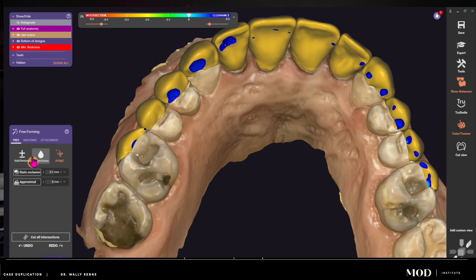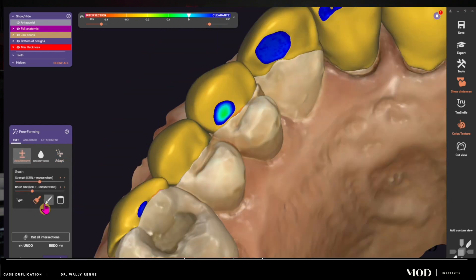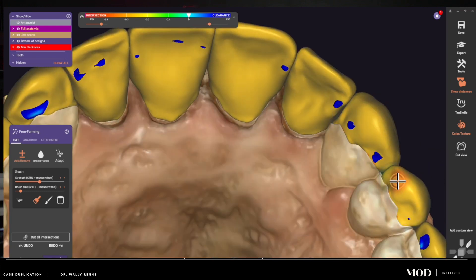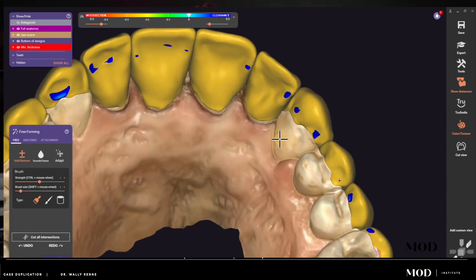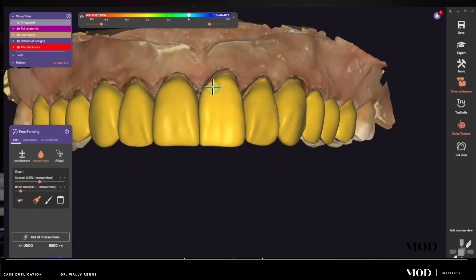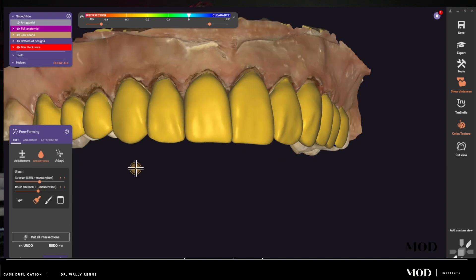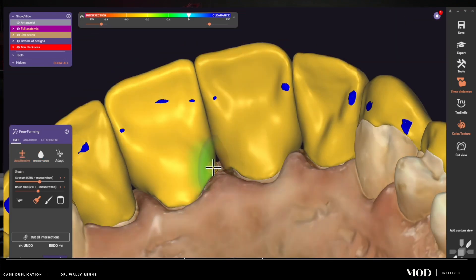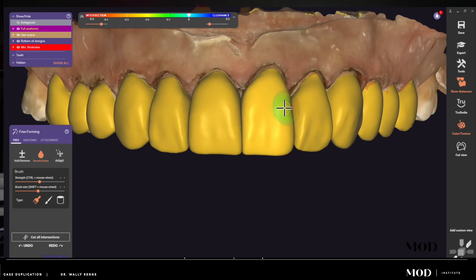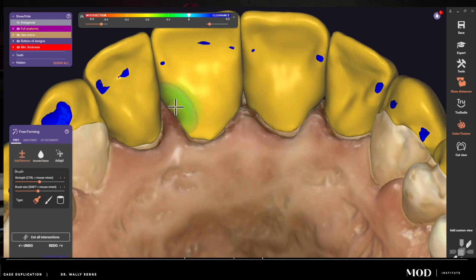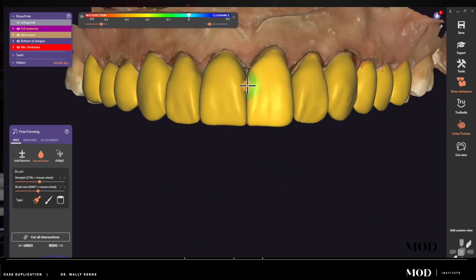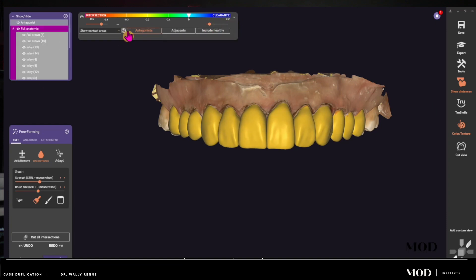We adapt down to our margins, cut proximal contacts, and fine-tune occlusion and proximal contacts just ever so slightly. The whole entire design process is literally about 10 minutes because it's all been done before — the patient has already approved everything. Every tooth is still editable; you can still move and smooth them. It's almost instantaneous, doing this on the day of tooth preparation by recycling a mock-up design — not using copy-mirror or pre-op copy, which never really work well.